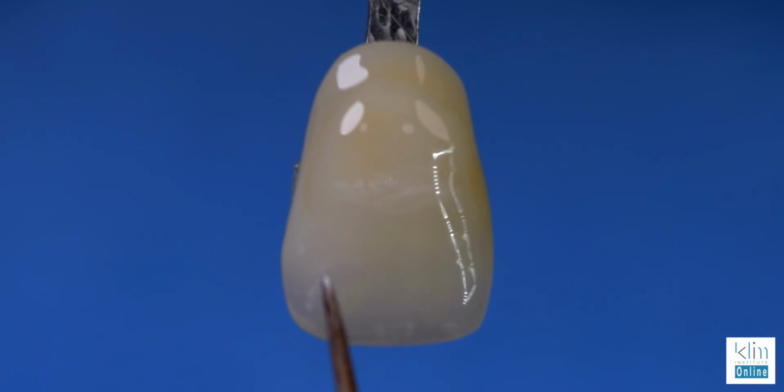And it's something that's really nice to have in our clinical theater. So this is a skill set I'd suggest you practice with. This is what I do in my classes. I warm people up on shade tabs before I take them to the ceramic and we fire it. One thing I have noted with MiYO is that I'd like to add a little more saturation than I want, maybe 10% more, because once it fires, it's going to look a little more neutralized, but it's really, really close. So I hope you had fun watching this video.